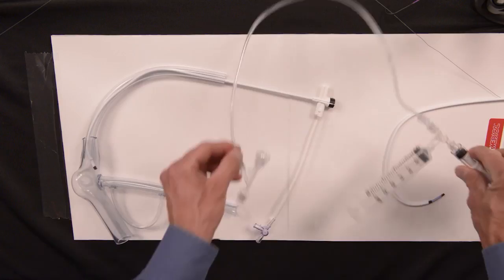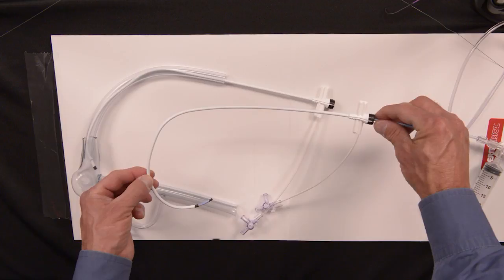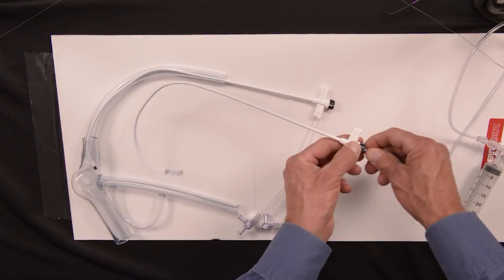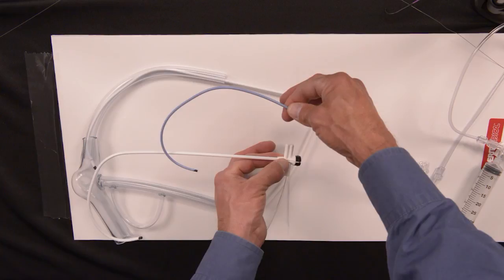The vital mainstay of the system is this coronary sinus guide. The CSG is a very soft nine French inner diameter catheter with a specific shape, and the shape can be changed when we insert this braided core. The braided core has metal braids that allow it to torque this catheter and manipulate to cannulate the coronary sinus.